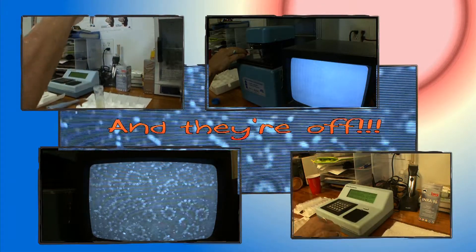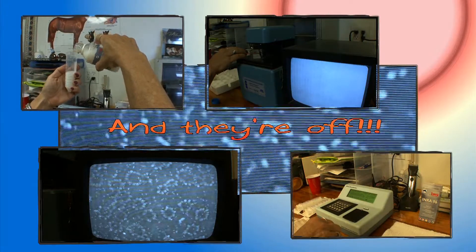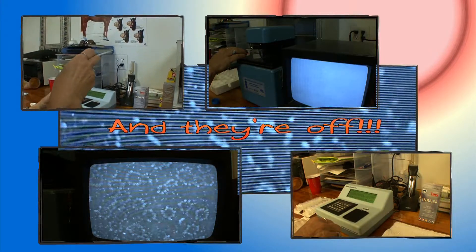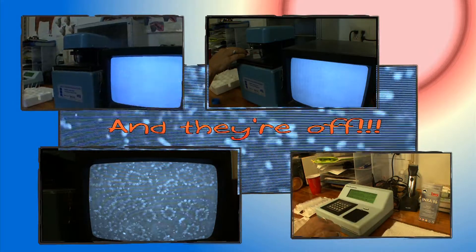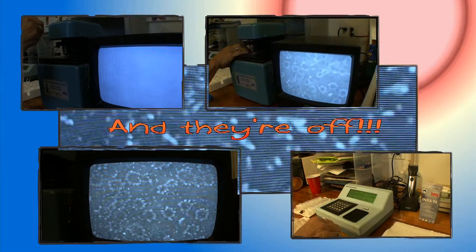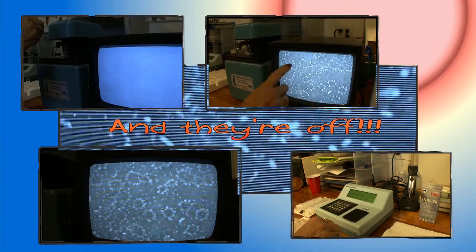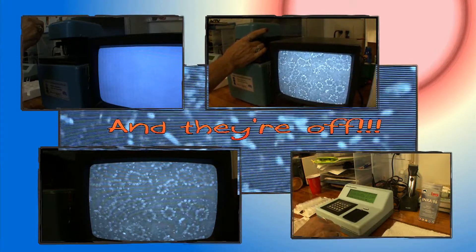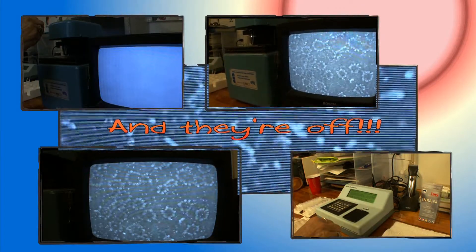So I'm going to take that at 4 to 1, which will bring us up to 25. We'll take a sample and give this a little time to swish around. Then we put this here and bring it into focus. Much of this on the outside is on the slide itself, so I'm just looking at the sperm cells.